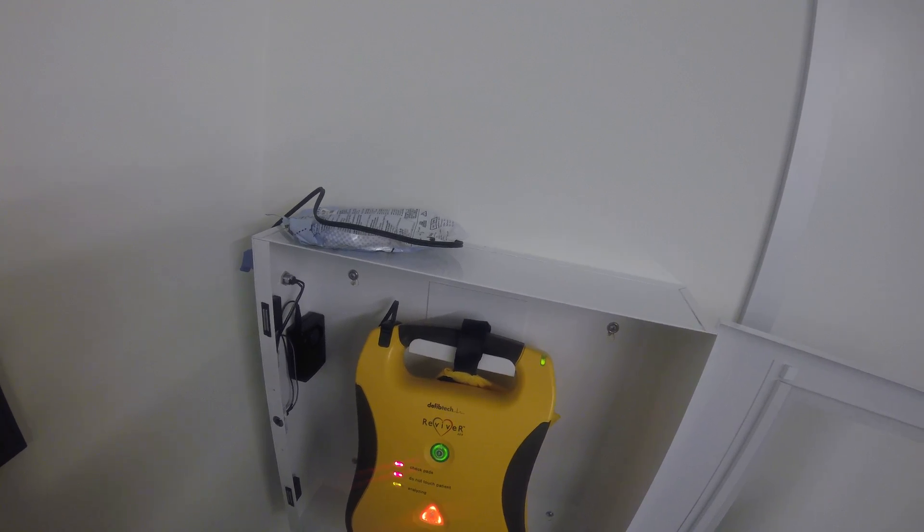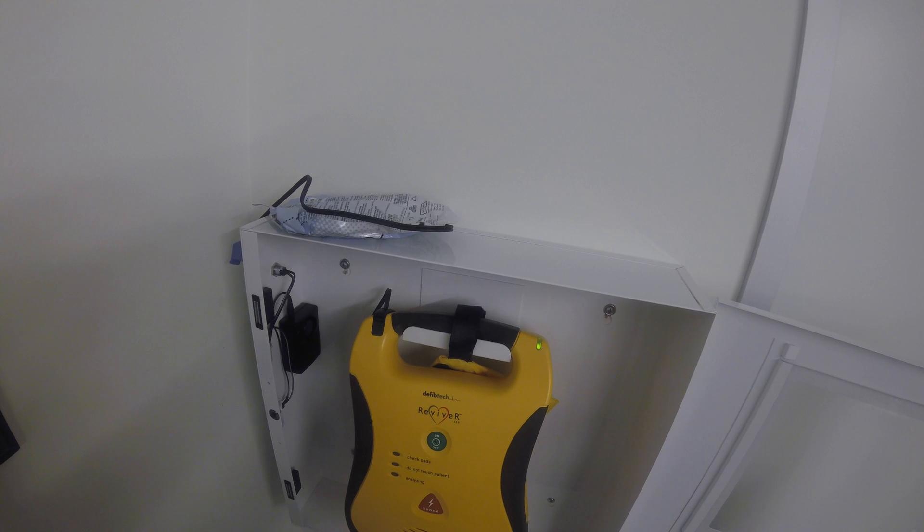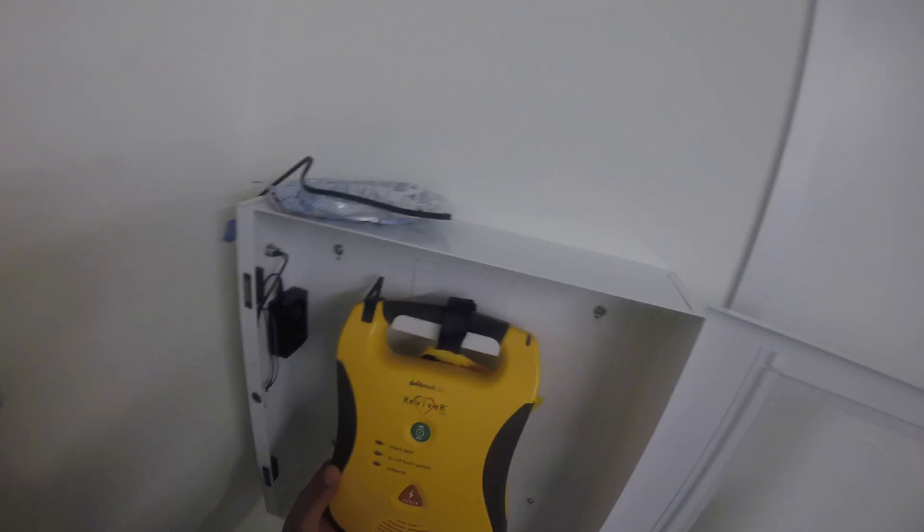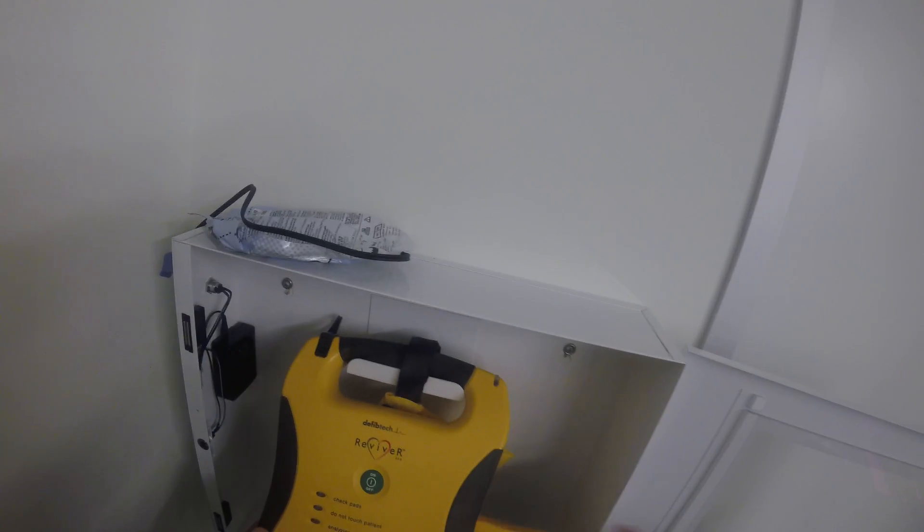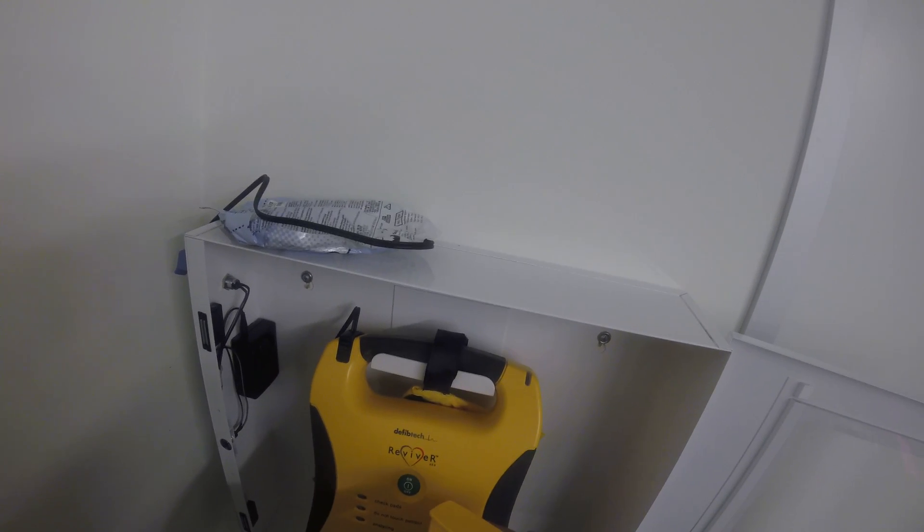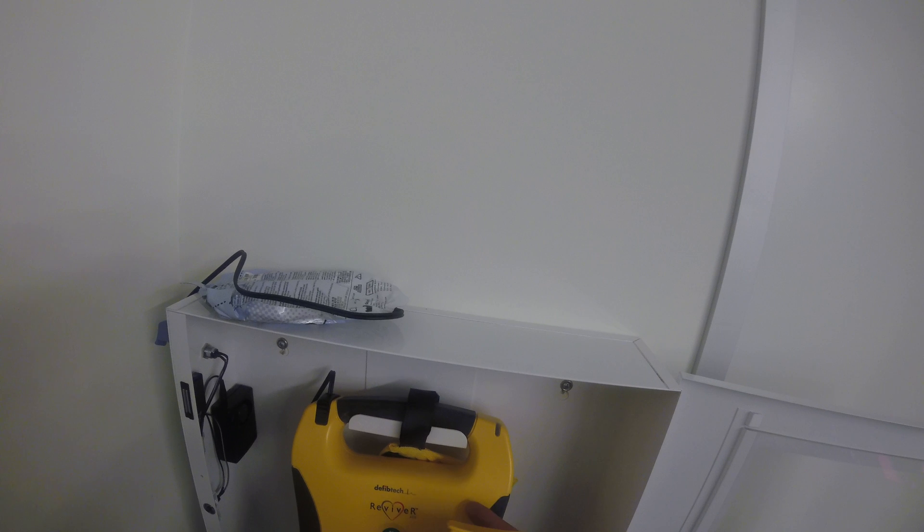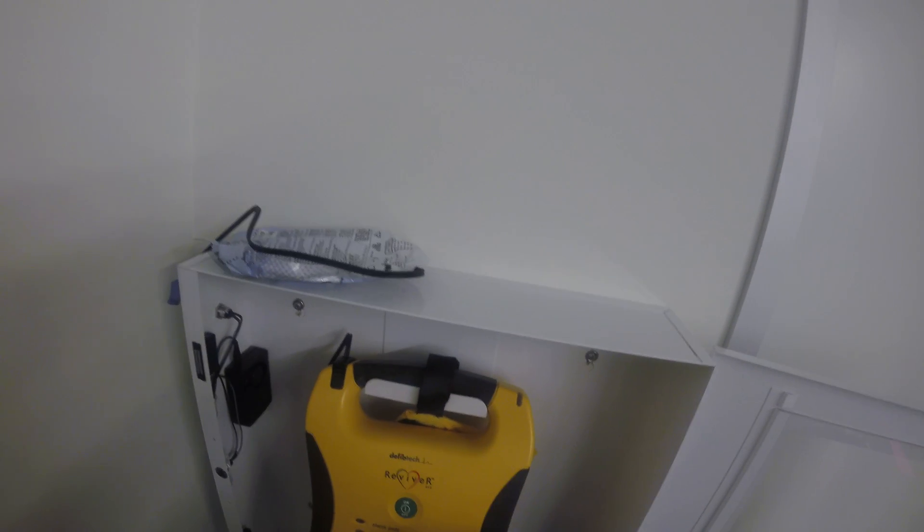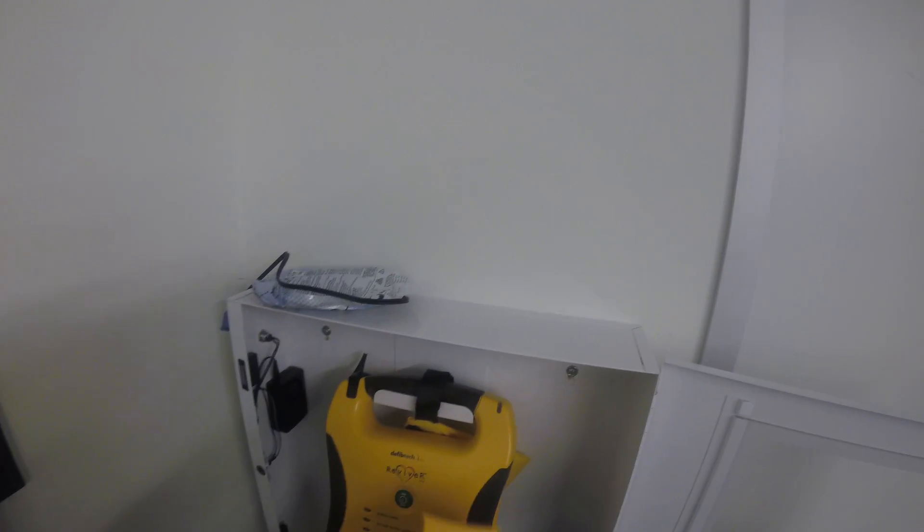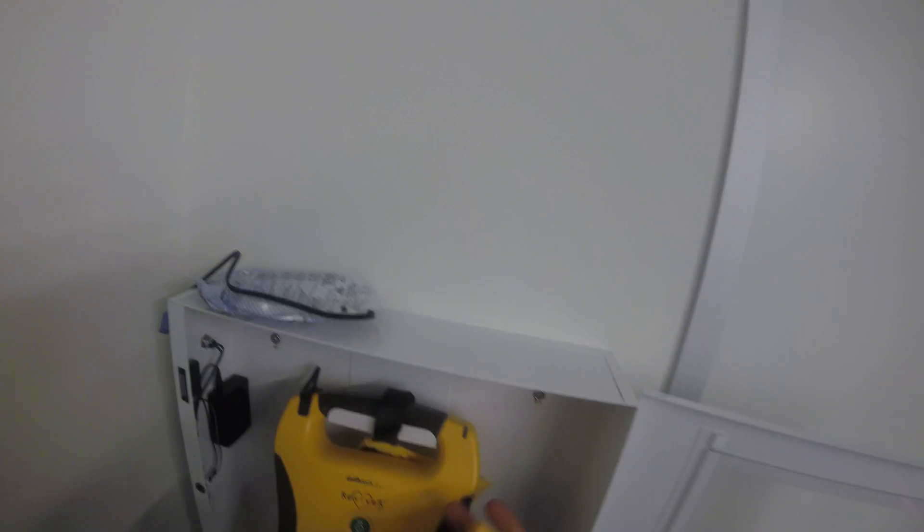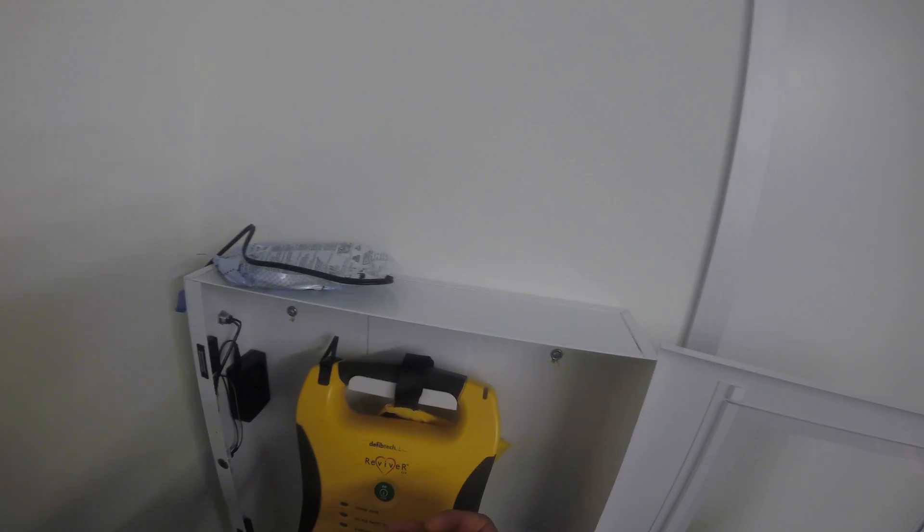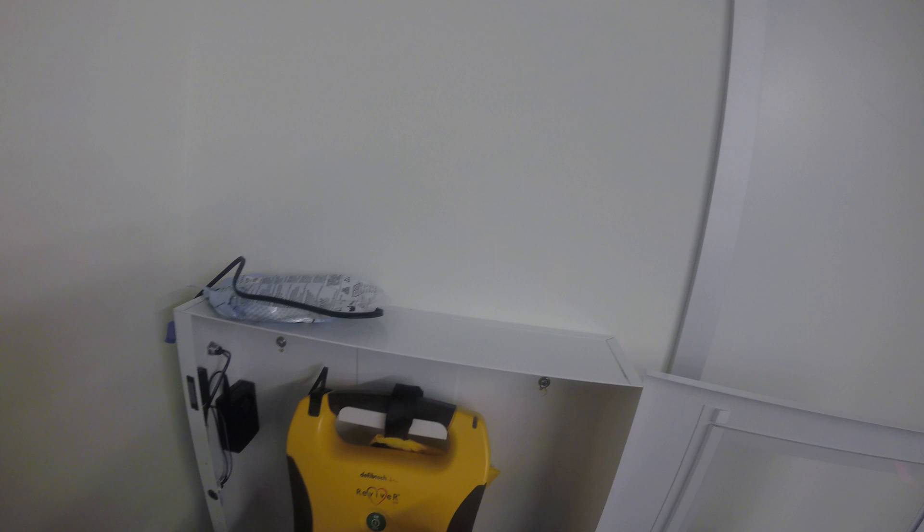Okay, replace nine-volt battery. So it's indicating that the nine-volt battery needs to be replaced. This battery in here, this nine-volt battery, needs to be replaced. Now this battery right here is just used for indicating if the unit is dead or if there's any problems with it, so it won't drain the main battery pack right here.